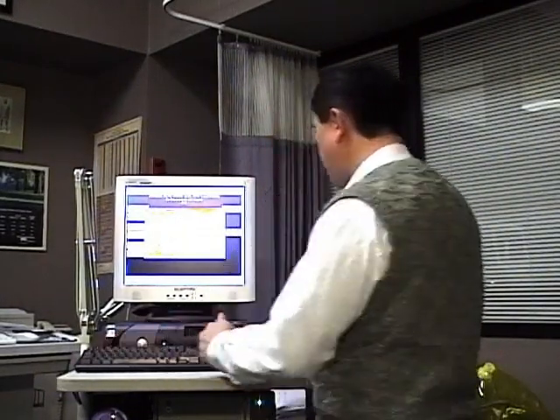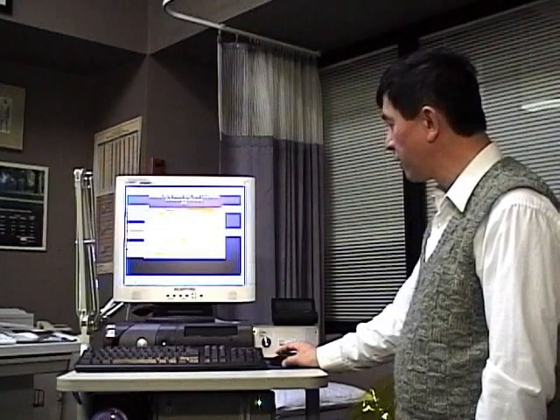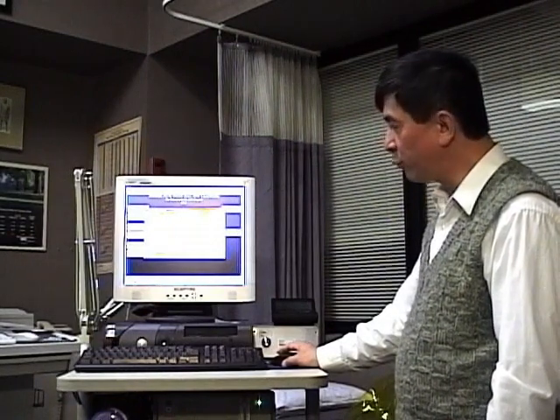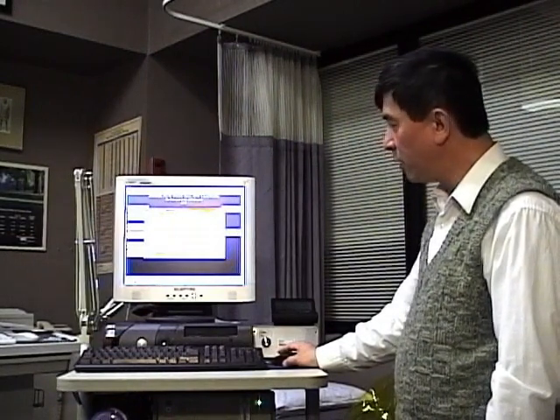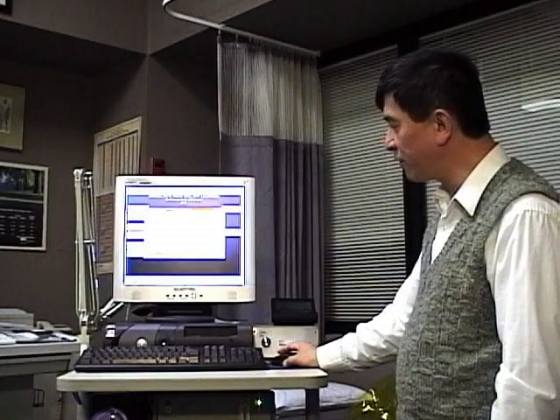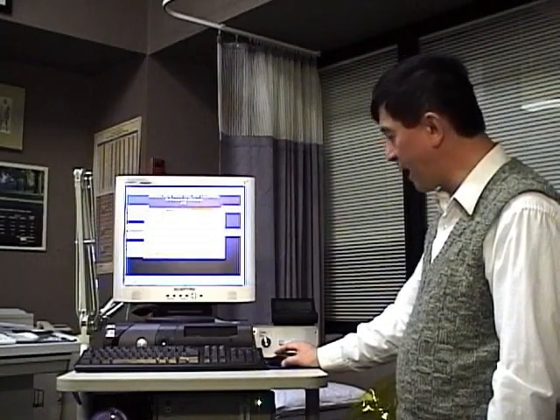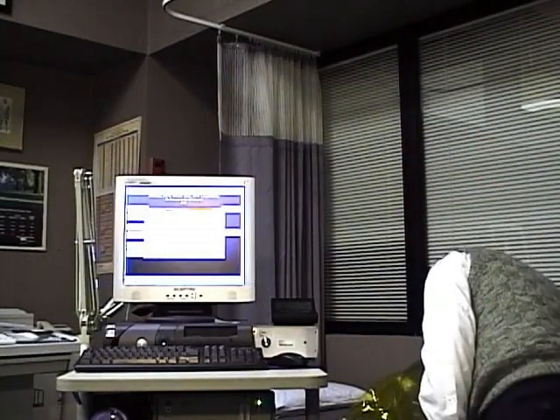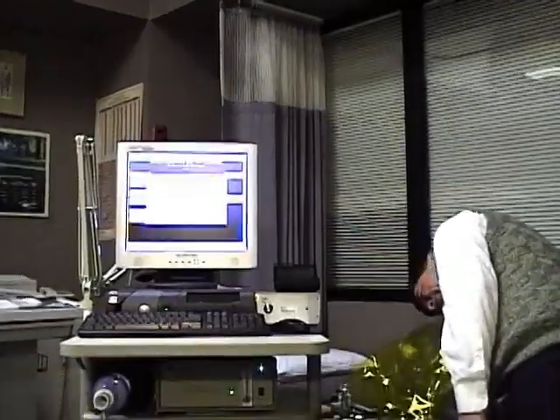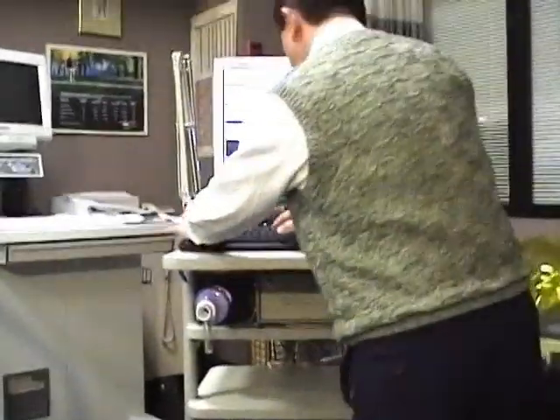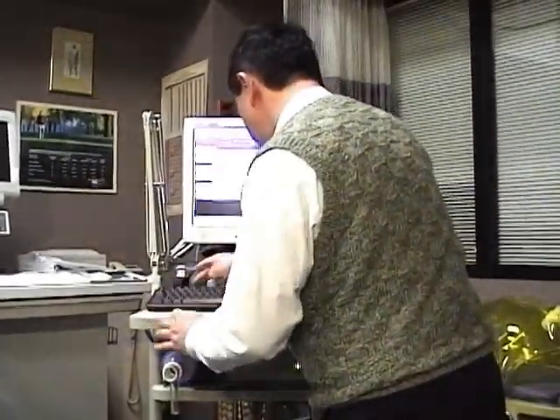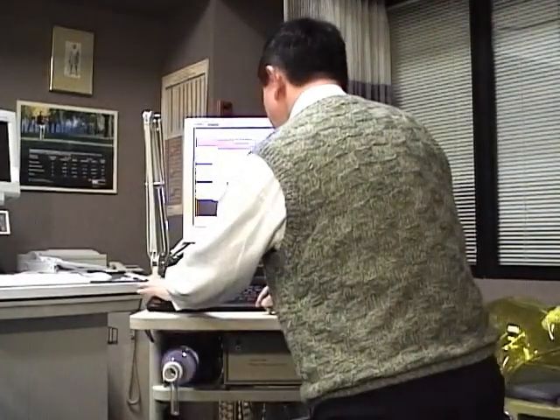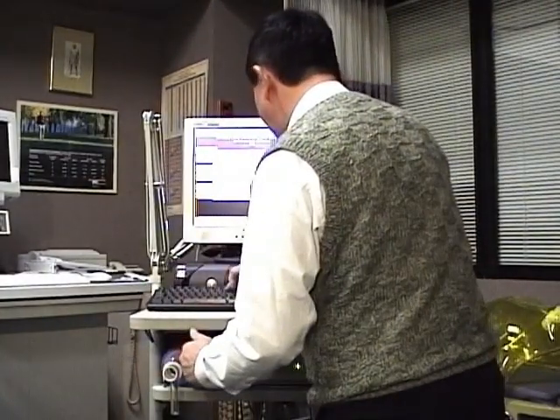And then we have the room air at 20.94, 0.2, 0.03% CO2. Standard gas, this tank we have, is 19.51.